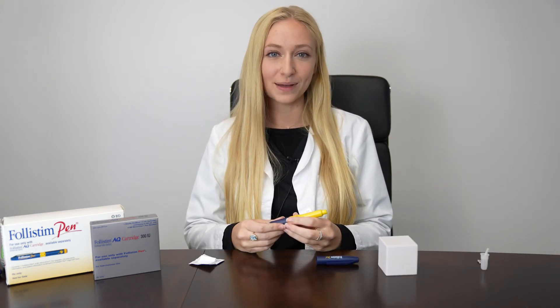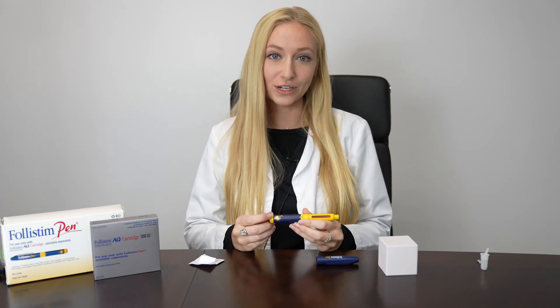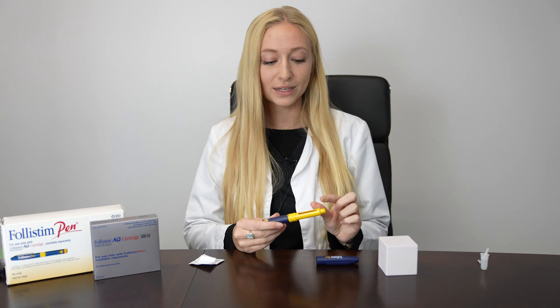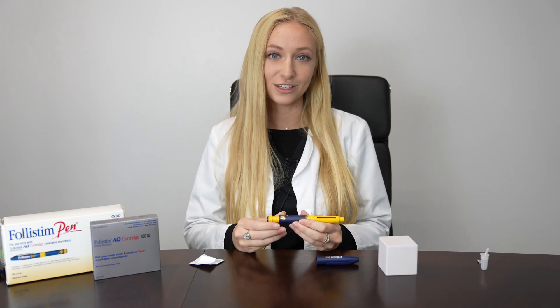In the event that your medication cartridge does not have enough units in it to complete your dose, after injection your unit window will not say zero — it will indicate how many units of medication you still need to take. In that event, replace your old cartridge with a new cartridge and twist to the remaining medication that you need.